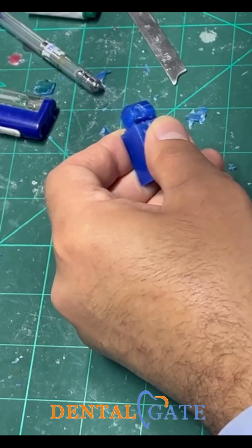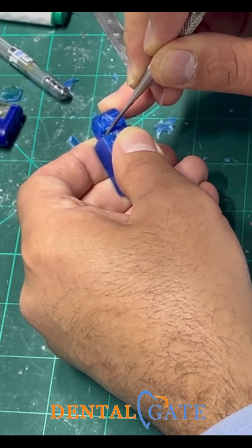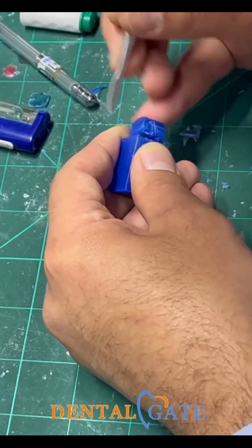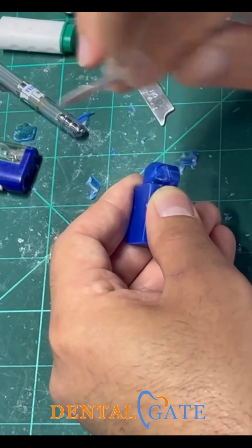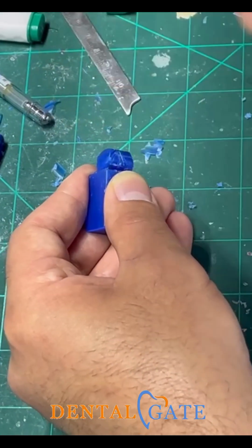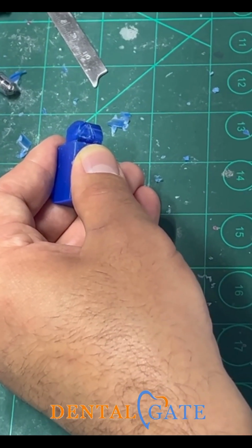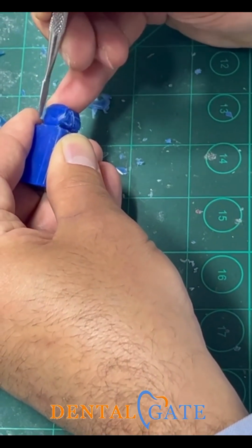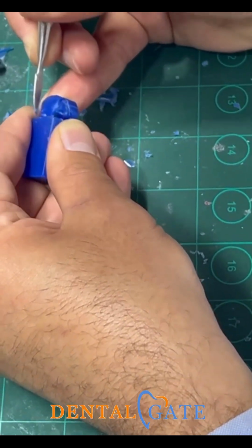Now, please, what I mean, the 5 millimeters, the minimum width at the cervical. When I increase to the 6 millimeters, that means I had a curve here. Please don't make it as straight. Because with the curve, it will start from here with the initial convexity. Okay? So this is the start point. And I will reach to the 6 millimeter here.